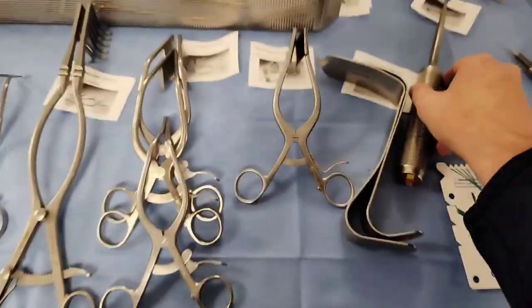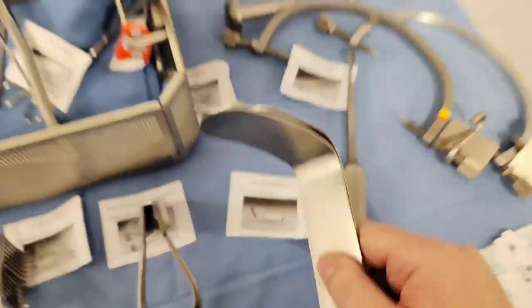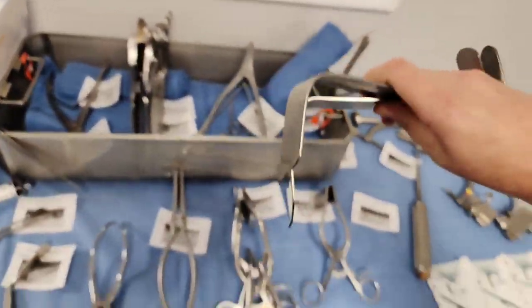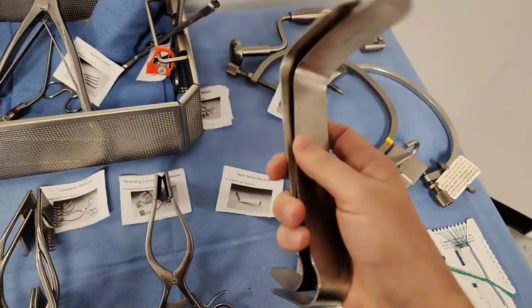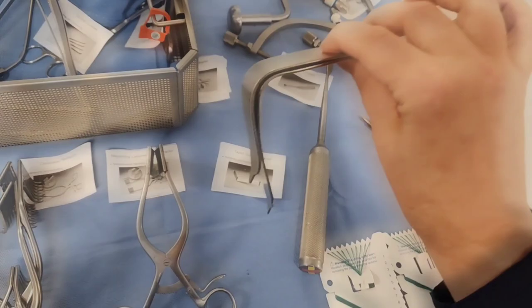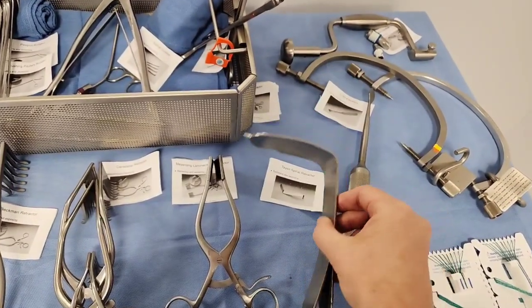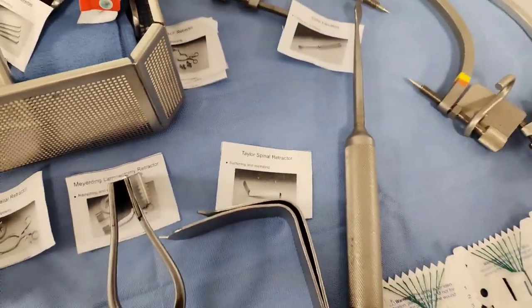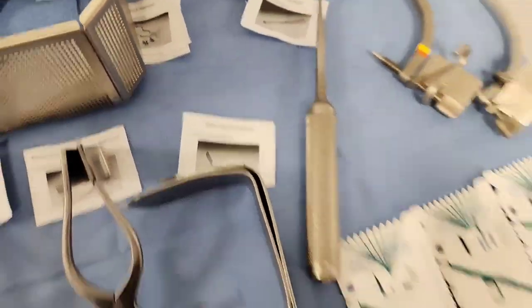Jumping over here is a Taylor spinal retractor. Look at how big it is. It's a handheld retracting device used in a lot of back cases — the Taylor spinal retractor.